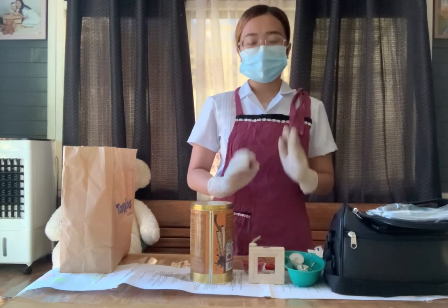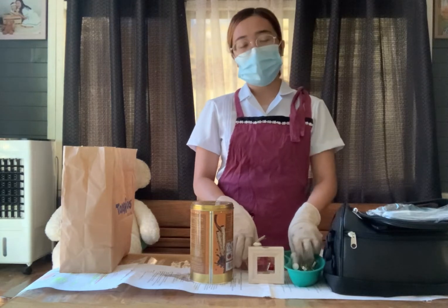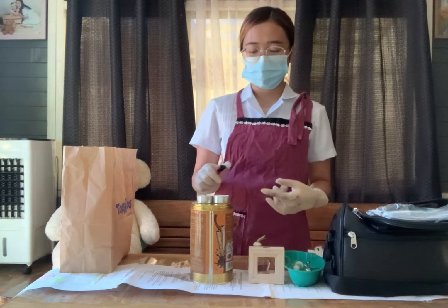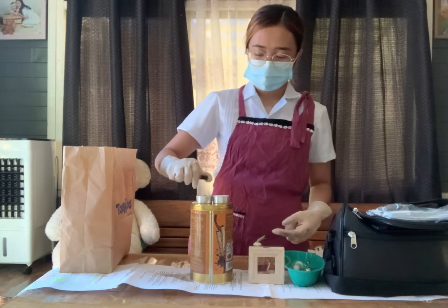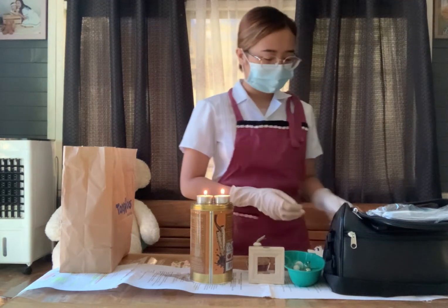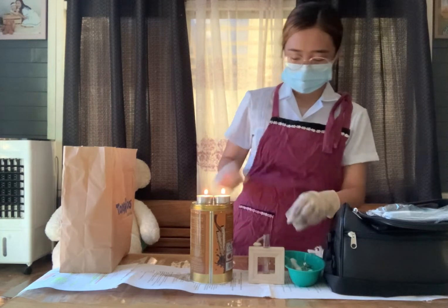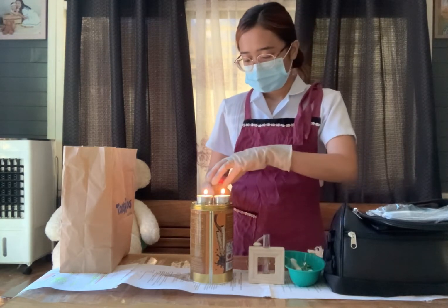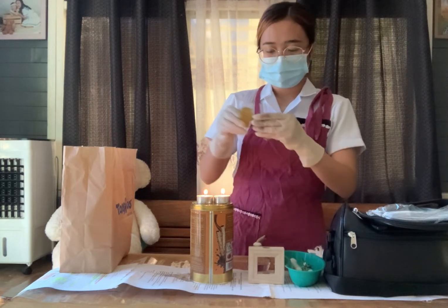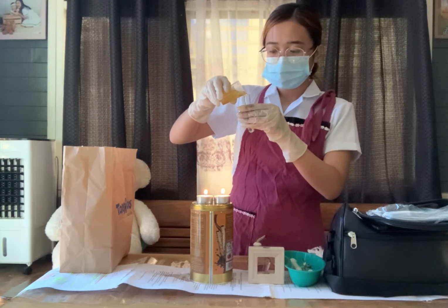To start with, we need to light the alcohol lamp. However, due to some problems, we will just use candles as an alternative to heat the test tube. After lighting the candles, we will now slowly transfer two-thirds full of urine into the test tube.